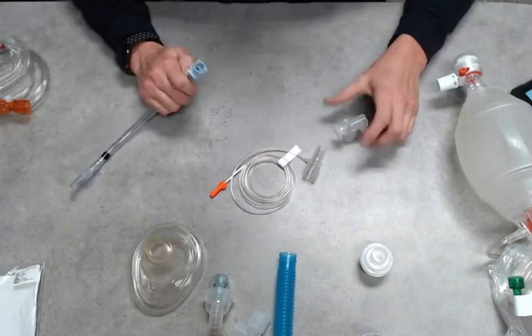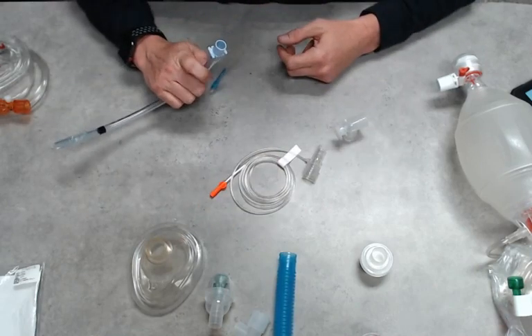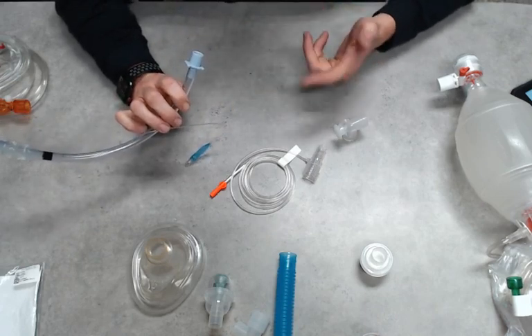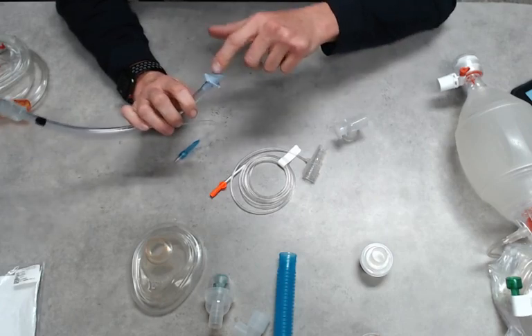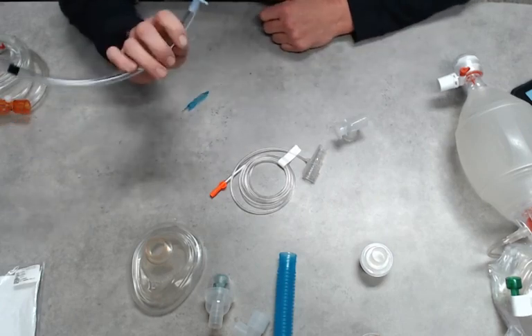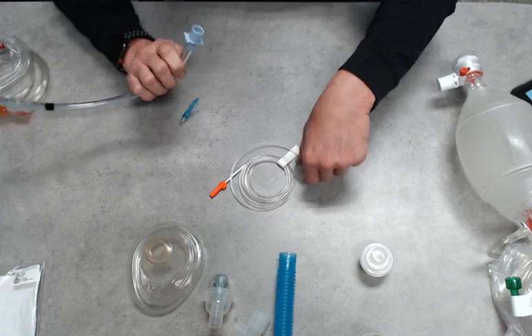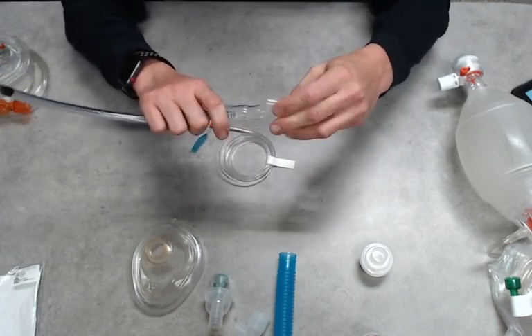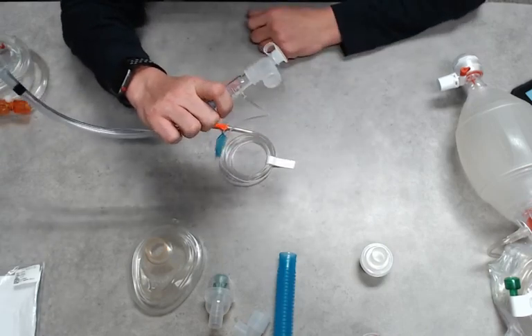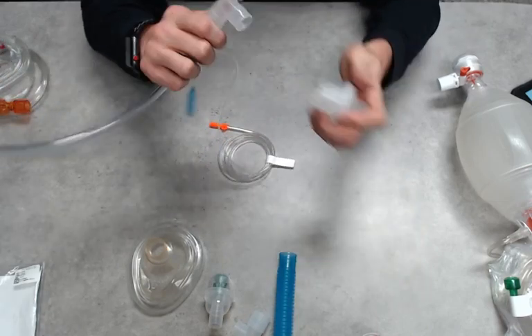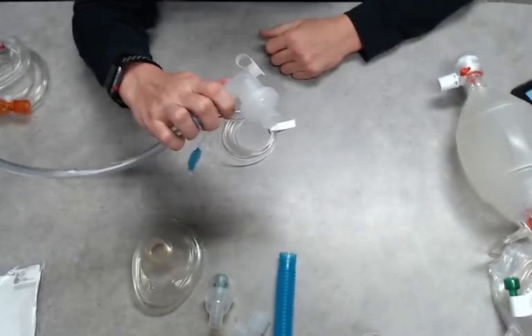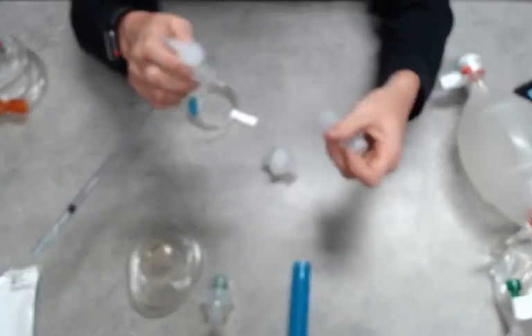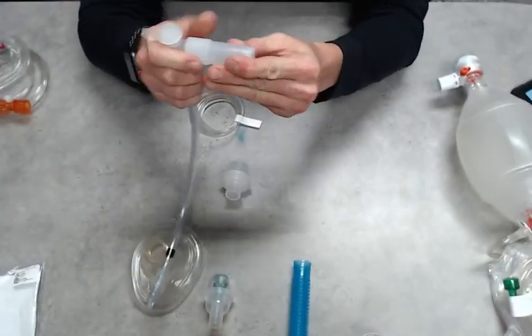We're going to do inline SVN with advanced airway. So we have our advanced airway. Again, this can either be an ET tube, an i-gel, LMA, any kind of supraglottic airway that you have. They all have the same diameter fitting here. So we have our end-tidal coming on next. We're going to have our elbow, again making sure we have the right size, right side connected there. Next we're going to grab our filter, connect it in there. And now I'm going to need to grab my T-piece. Correction, for SVN, T-piece goes first and then our filter would go on to that. And then we're going to have our flex tubing.